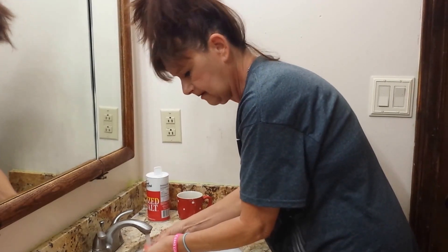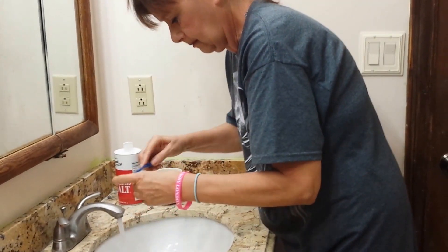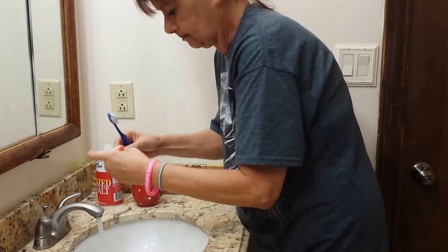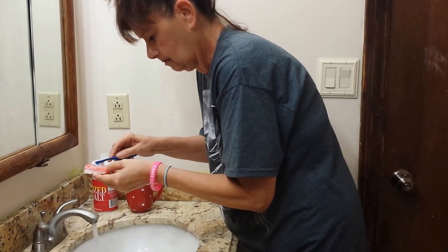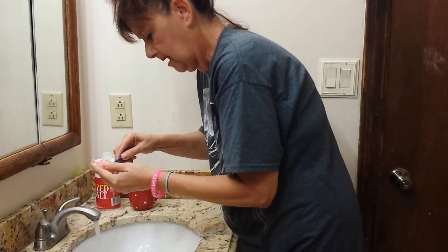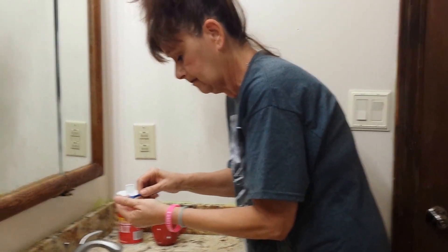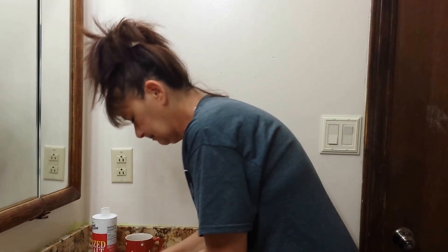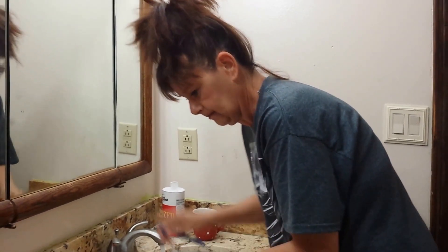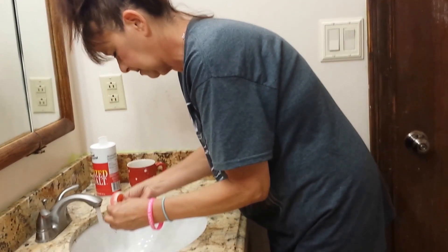Let me get these little puffy balls cleaned up. I like to do the top of the teeth first. My teeth feel better if I sleep without them, and since I'm not married or since I don't have that special fellow come over right now, I should be a little more comfortable. Clean them up so they look nice and tidy.